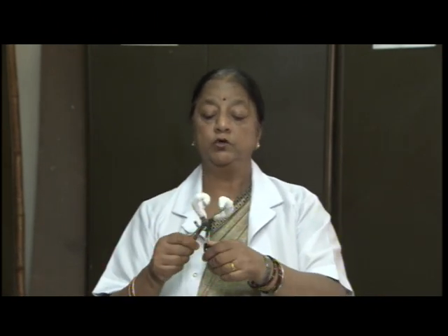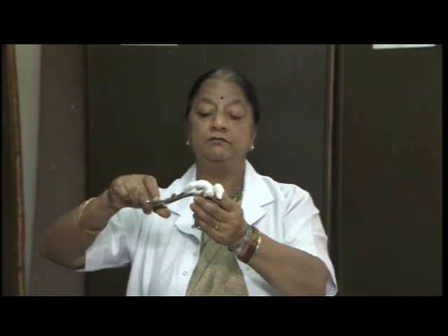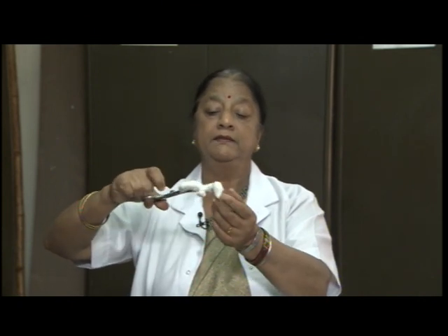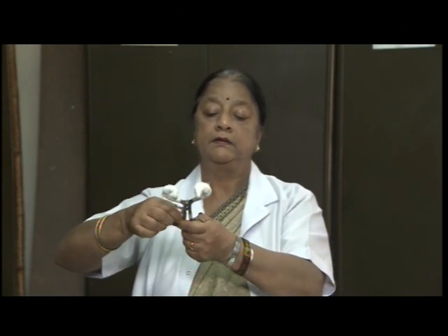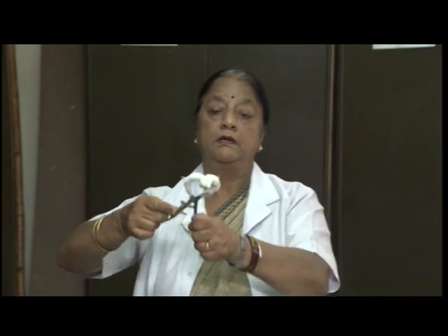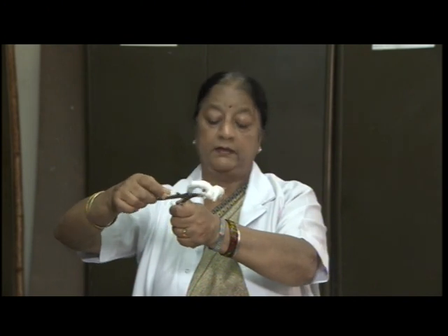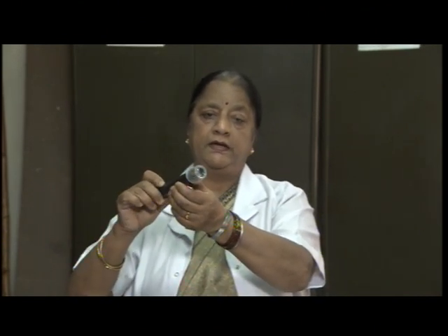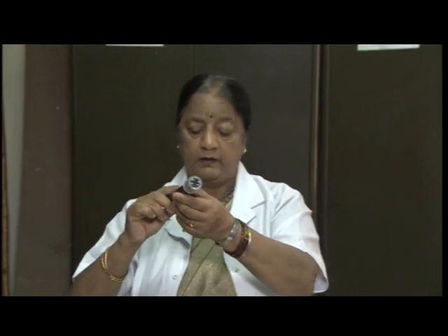Sometimes patient is not able to open the mouth, or while giving mouth care, we make use of this device, which is called mouth gag. So, this can be opened by putting this in the mouth and closing it. This gets closed and this gets opened like this. We can open the mouth and give the mouth care. We also make use of torch wherever it is required to view the interior of any of the body cavity.